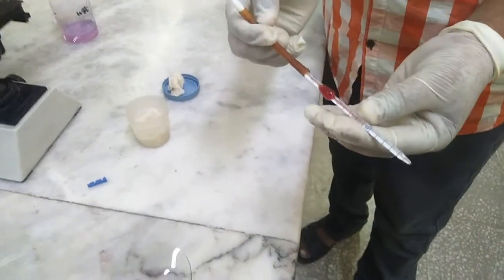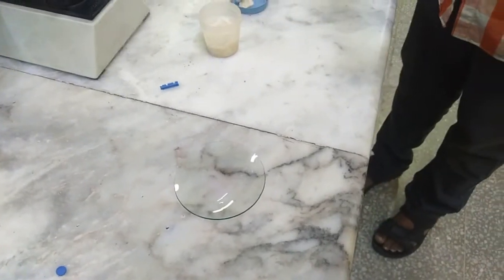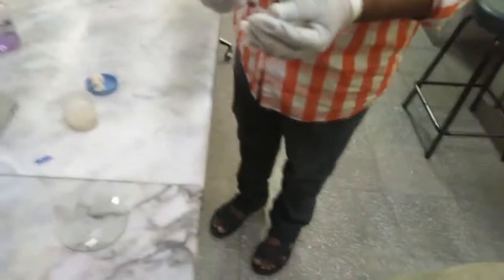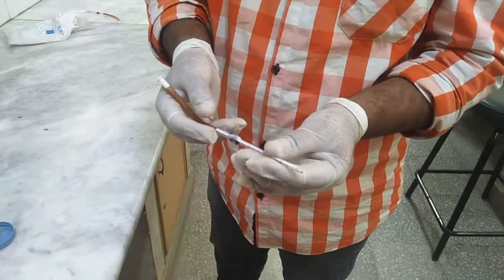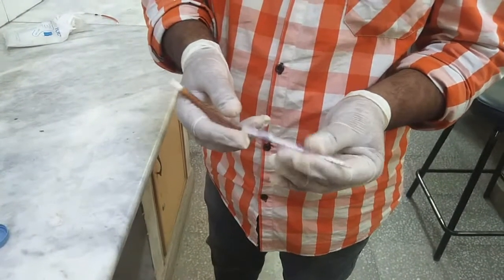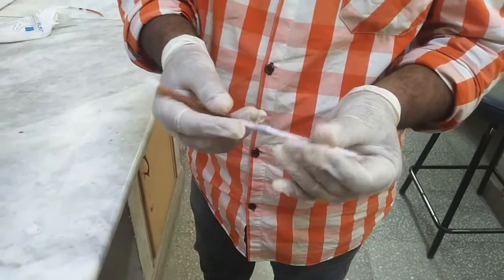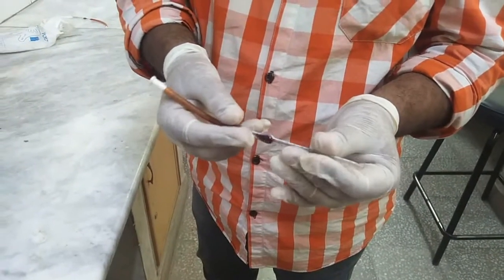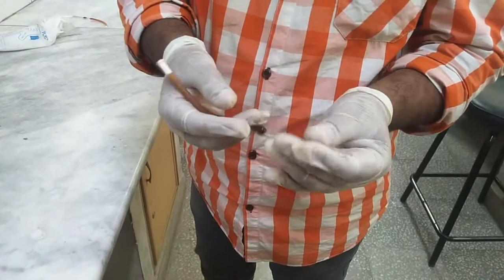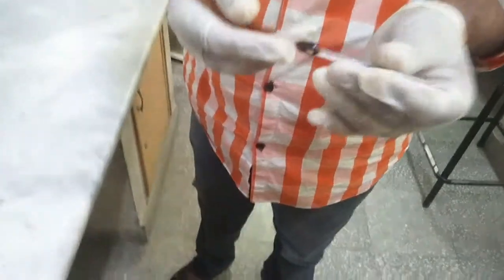This Turk's fluid is taken from the watch glass in which we already placed it. The next step is that you have to mix the blood and the fluid inside the WBC pipette by rolling it inside your palms for about a minute. This will ensure proper mixing of the blood with the Turk's fluid inside the bulb of the WBC pipette.